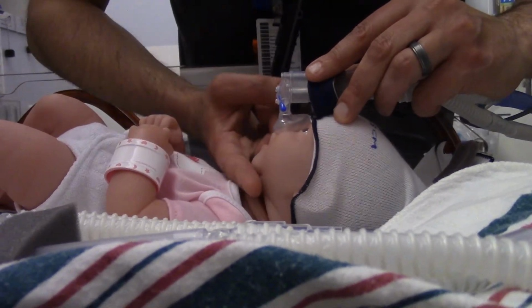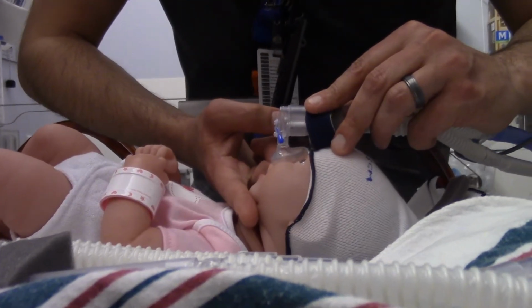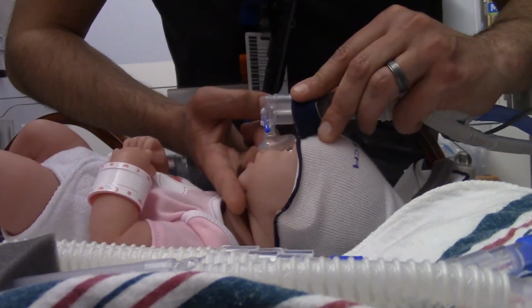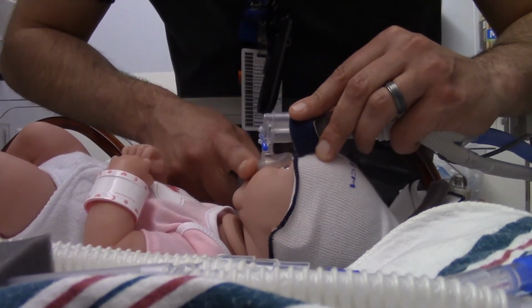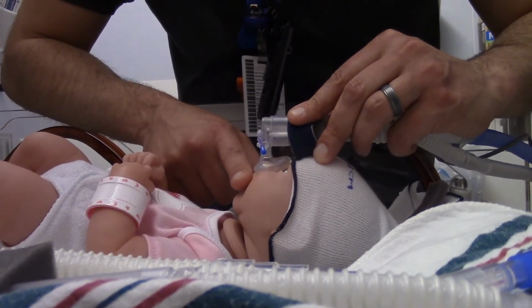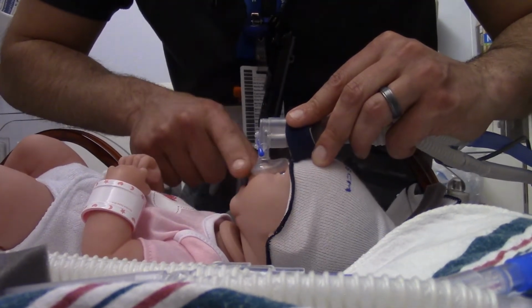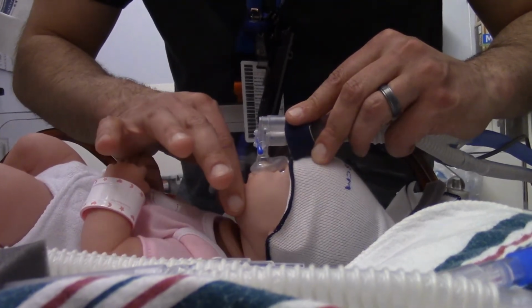Chin straps. For the gestational age of babies that we typically deal with, a binky is going to be your best friend when it comes to closing off the mouth and stopping that pop-off valve. The mouth acts as a pop-off valve when the baby has too much pressure in it, or they don't have the motor skills to close it. Micropreemies typically do not, so they need the chin strap.